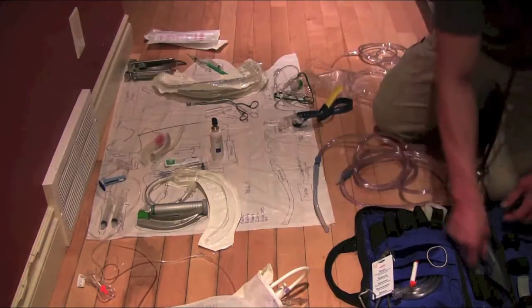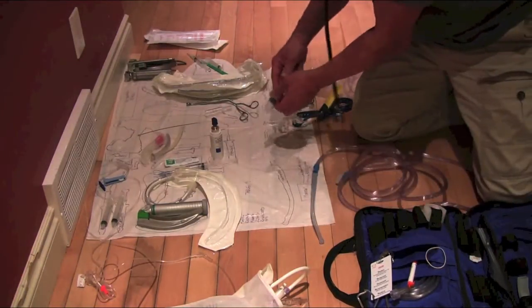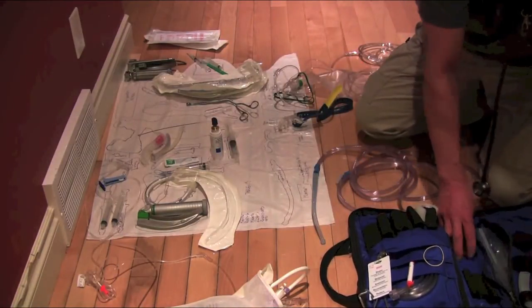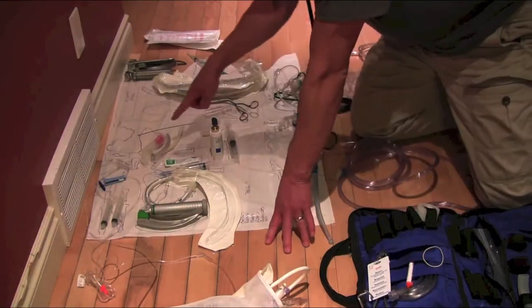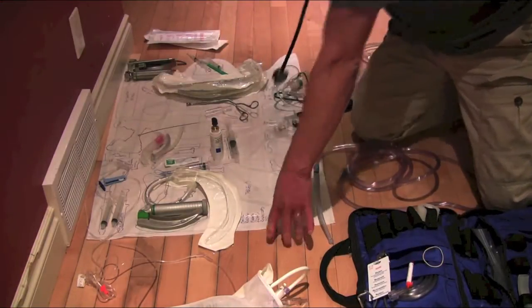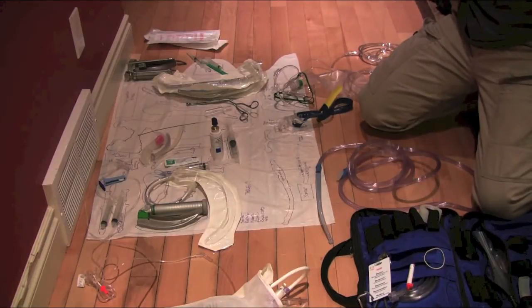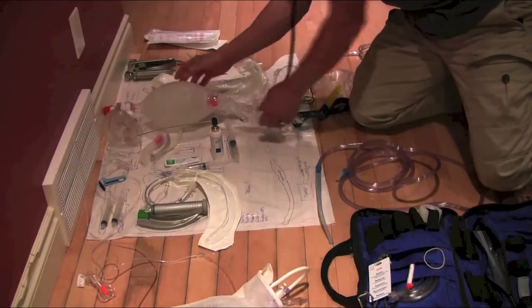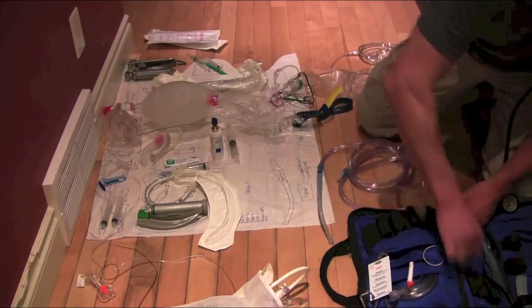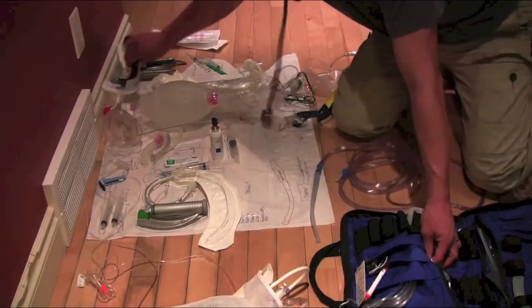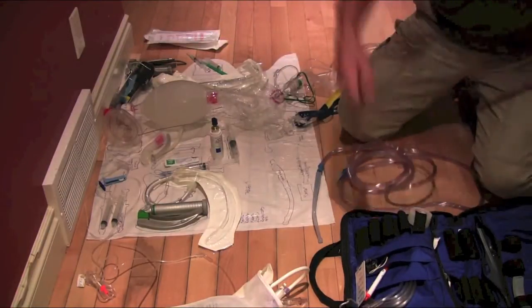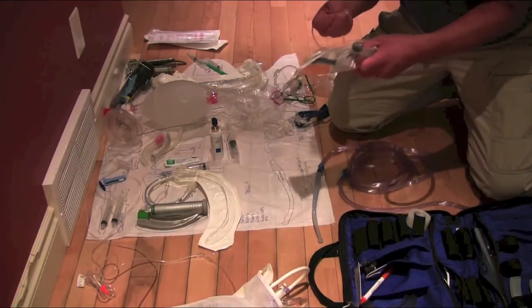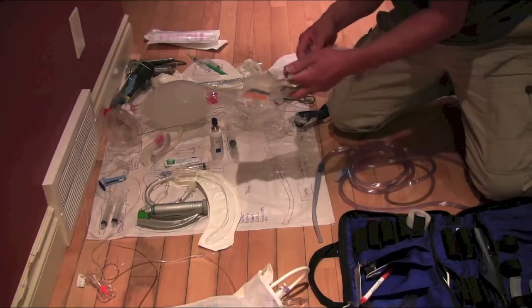Post-intubation medications. Get a syringe to draw up for that and pressors. Syringe to draw up for that. Check, check, check, check. Bag valve mask with the PEEP valve. Supraglottic airway, air track. Cricothyrotomy kit. Syringes ready.